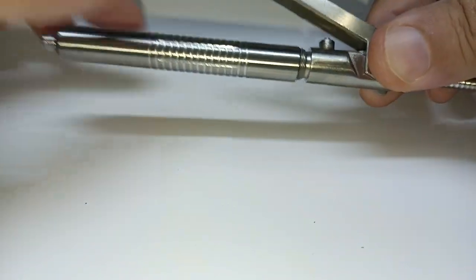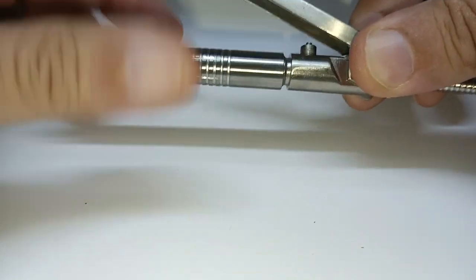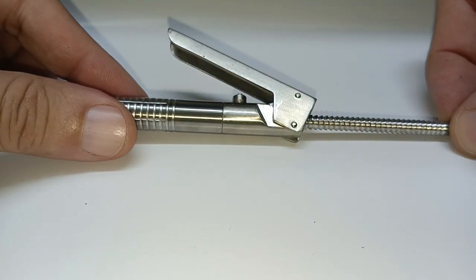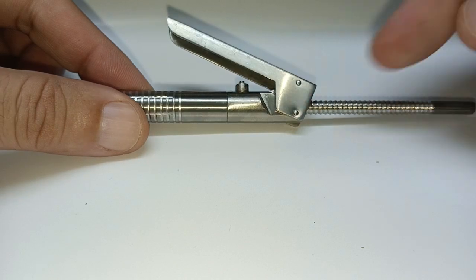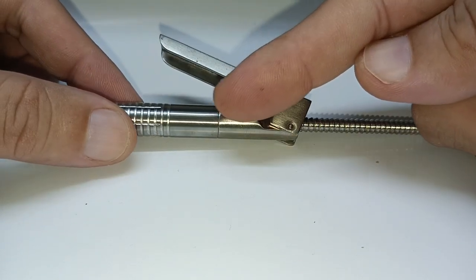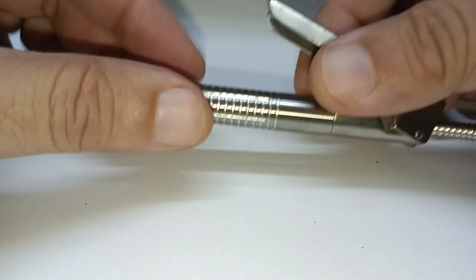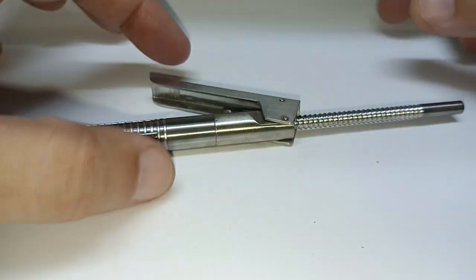Don't put the needle yet. Once you have tightened it, then this one-way clicking mechanism, you push it in a little bit till it engages at the plunger action of your carpule. Then you attach your needle to it. The way it works is every time you squeeze this, the plunger would get engaged.